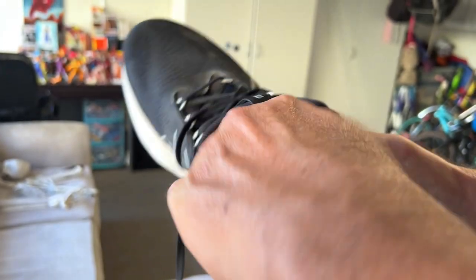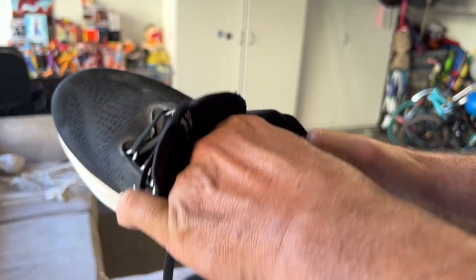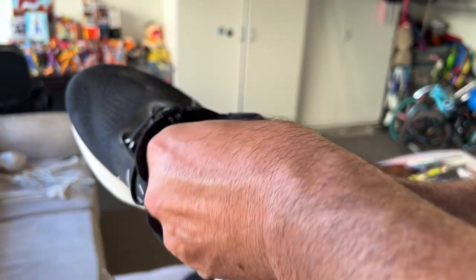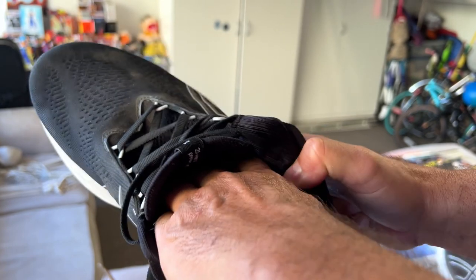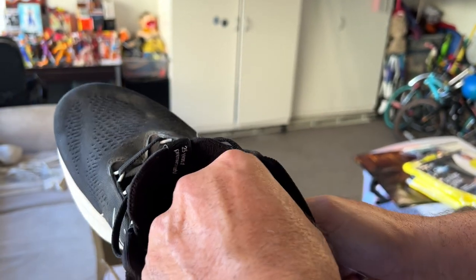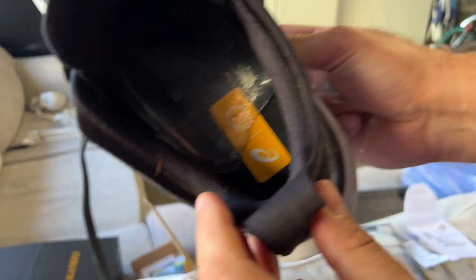Then you place this on the edge and have it curl up the arch in the middle. I'm probably not putting it in the exact middle, but that's what you want — in the middle so you get that arch support. Then this gently goes up against the edge, just like that.